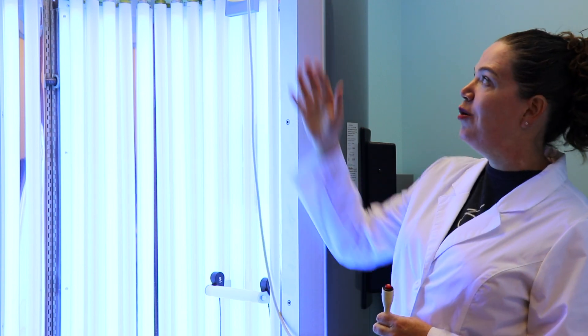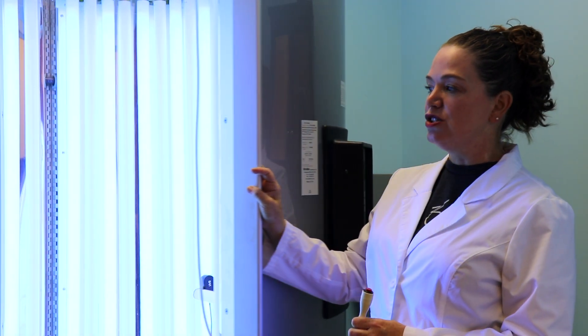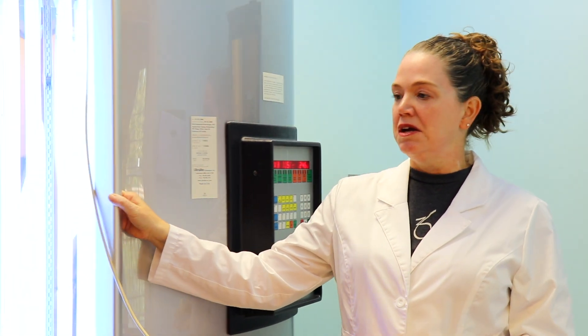For those of you who think, 'Oh, I'm a little bit claustrophobic,' it is, as you can see, open on the top. When the patient's doing their treatment it is closed, but if they get a little claustrophobic, you just open it right up and step right out.